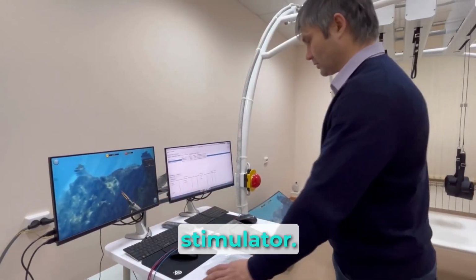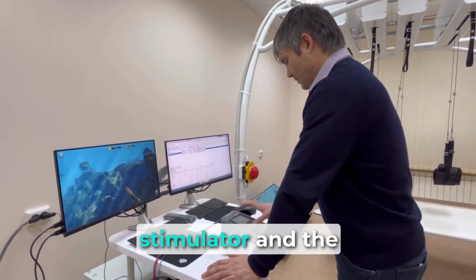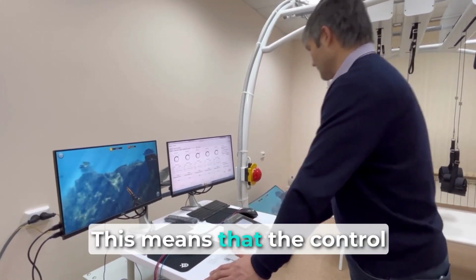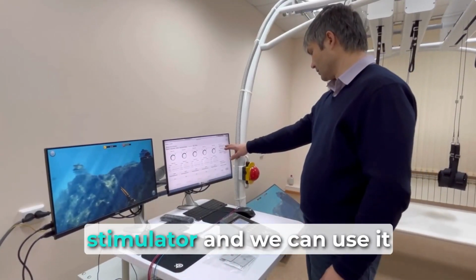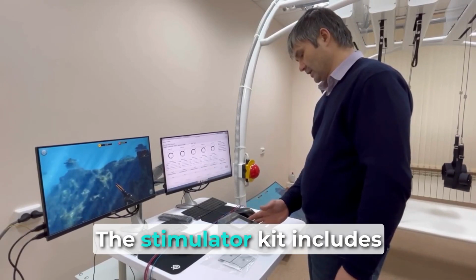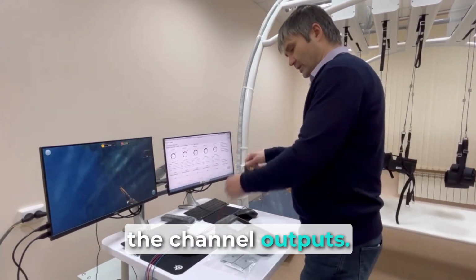Turn on the electrical stimulator. On the Stimulation tab, we see the serial number of the stimulator and the battery charge. This means that the control program has connected to the stimulator and we can use it for its intended purpose. The stimulator kit includes wires that are connected through a special connector to the channel outputs.